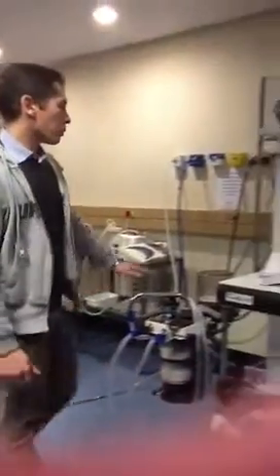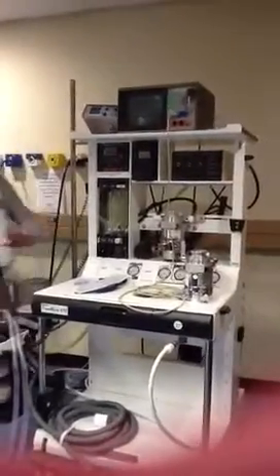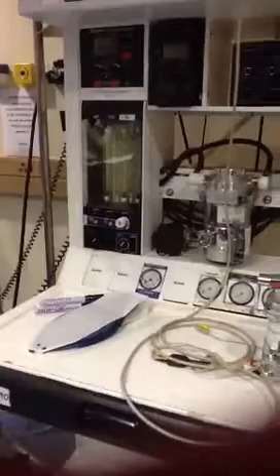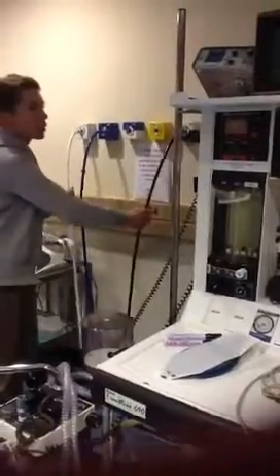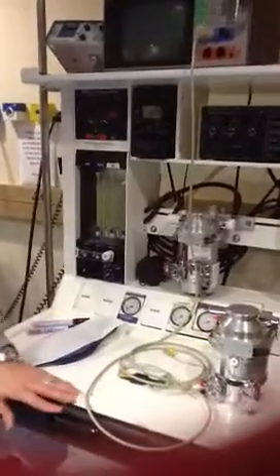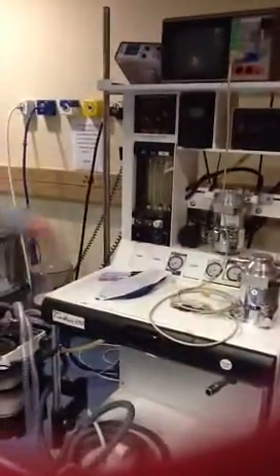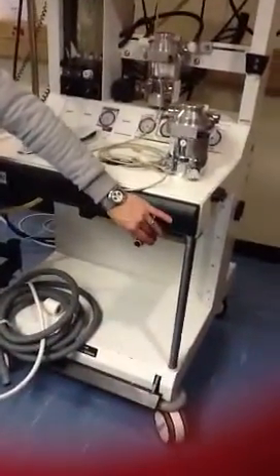When you start checking the anesthetic machine, all the machines have some place where they switch on. This one switches on there. Then your whole system is divided into a high pressure system, which is the pressure coming from the pipes. This then gets converted to a low pressure system, and this is where your fresh gas flow comes out eventually. You mix the gases that you want for the patient, add some inhalational agent to it, and then it comes out of your fresh gas outlet.